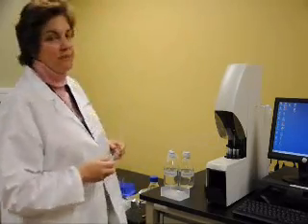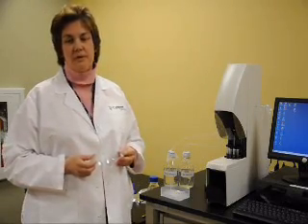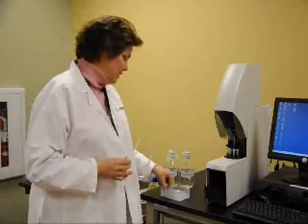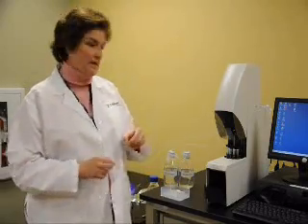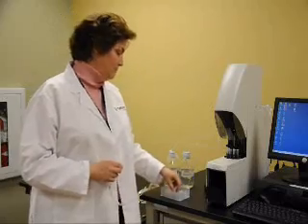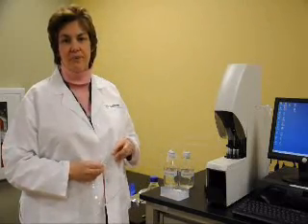The Rapid Trace workstation is designed for solid phase extractions from biological samples. Your samples will come into the system in a test tube. They could either be in a 13x100 test tube, or if you have a larger sample, it could be in a 16x100 test tube.